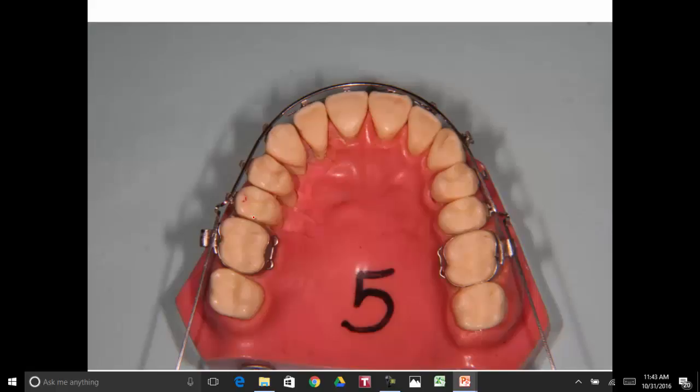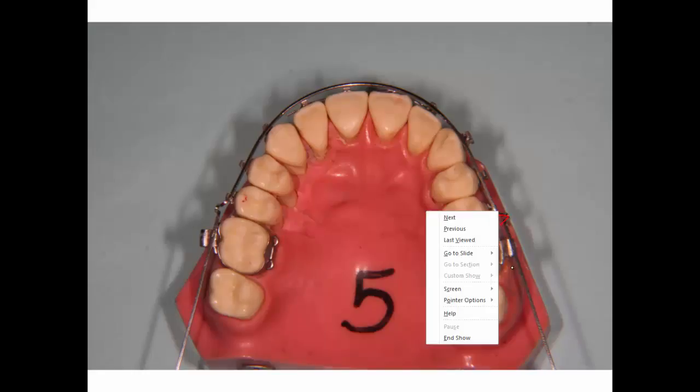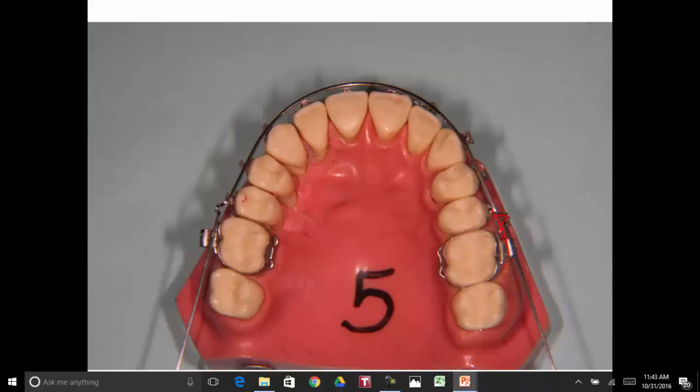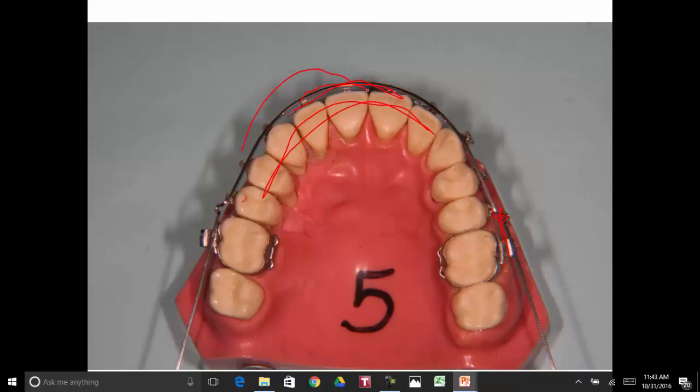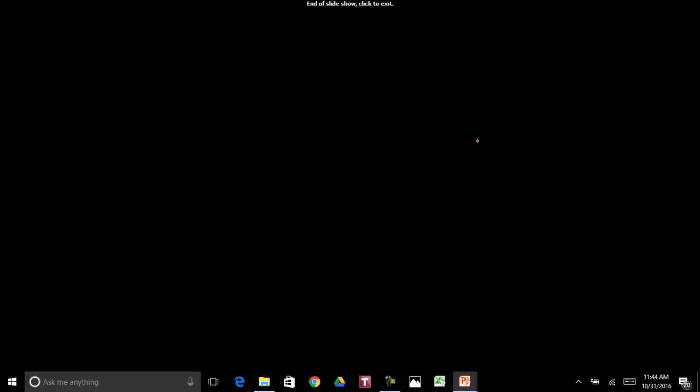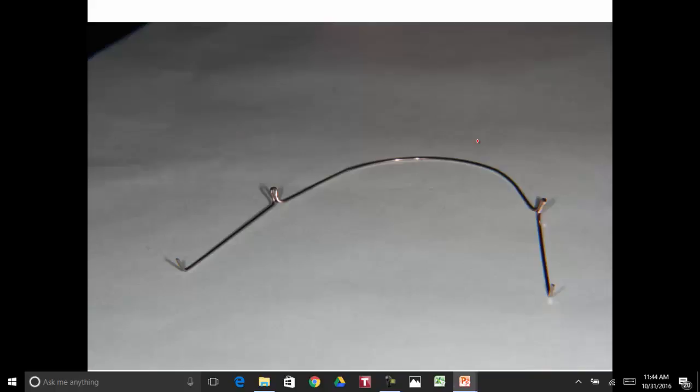And there it is, set it on a typodont, and the omegas will be kind of out to the buccal, and it'll allow us to hook this and tie this archwire back real tight. We can close space or whatever you want to do, or you don't allow the archwire to kind of rotate or slide around in the arch so that the part out here would go out to the side if you did, if you let it slip in the arch. So this is how you do an omega in a dental archwire where you're doing orthodontics and you'll want to be able to tie it back. If you're not used to using them, this may be totally confusing to you, but if you go back and look at these cases that we've done, we used omegas on most all of our archwires.